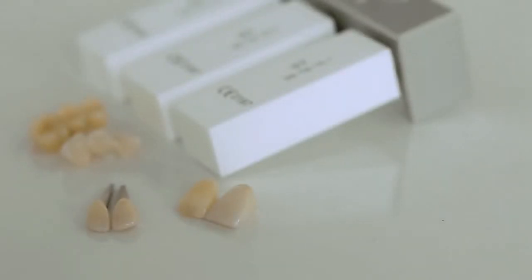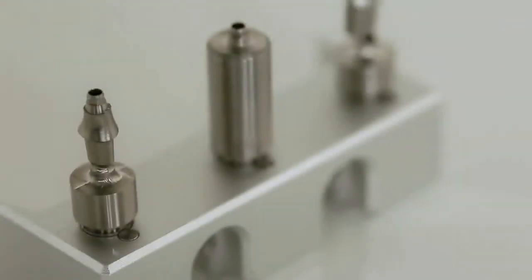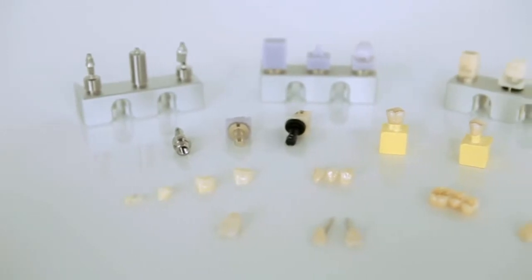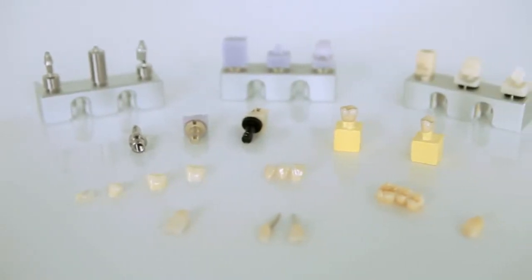CoLab Receiver can process all the materials including glass ceramic, resin ceramic, zirconia, titanium and etc. Therefore, various clinical cases such as inlay, crown and custom abutment are available.